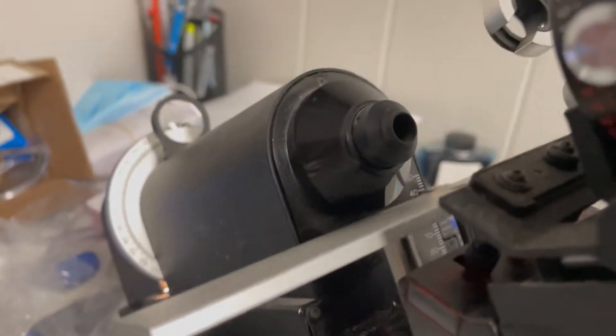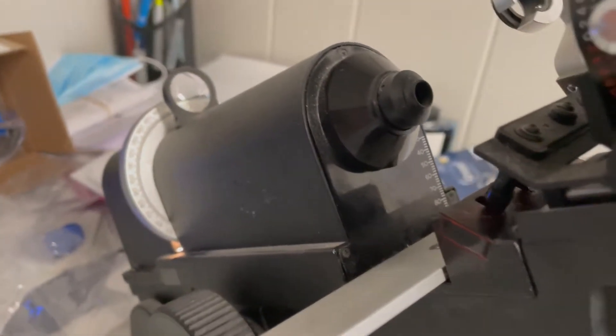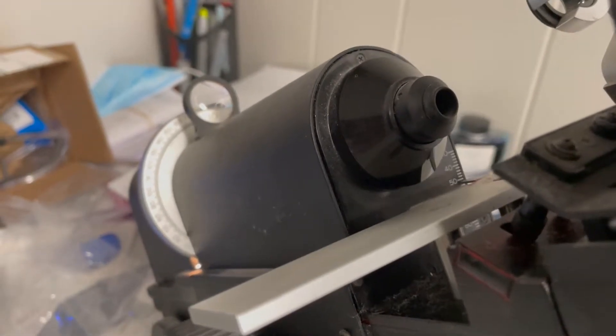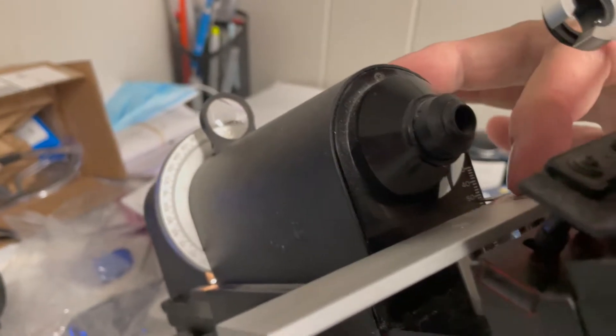Okay and usually when you're spotting uncuts you're just going to leave that all the way down so it's out of the way. Some people might use this to brace as they put the lens on there. I don't recommend doing that.